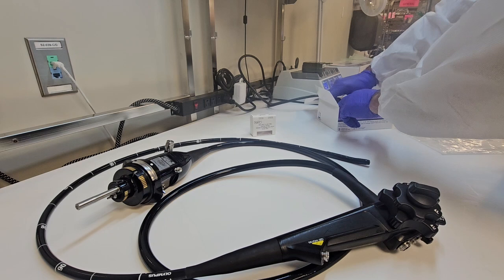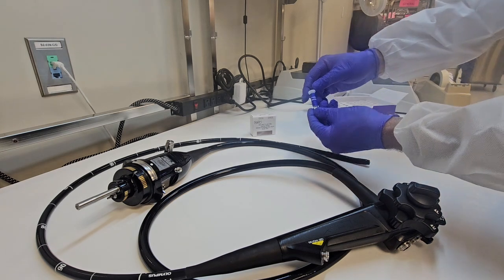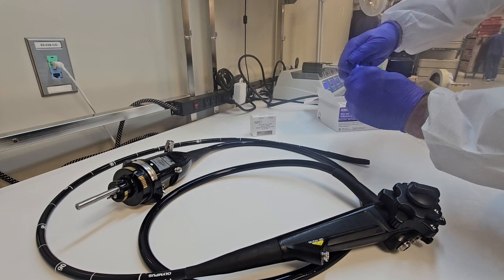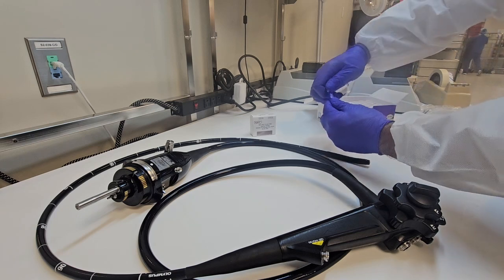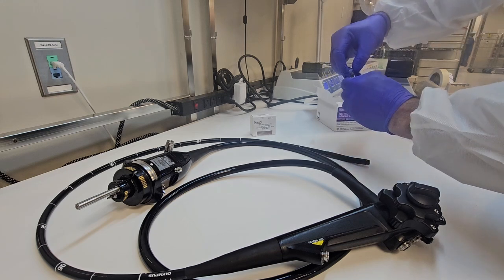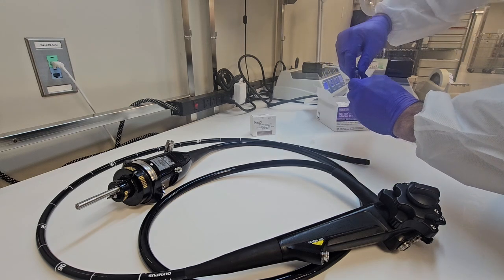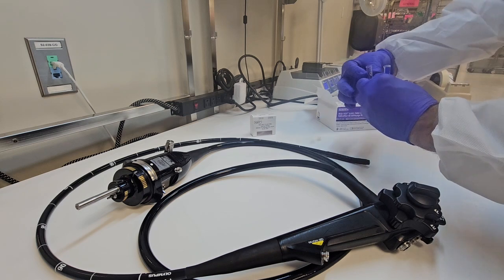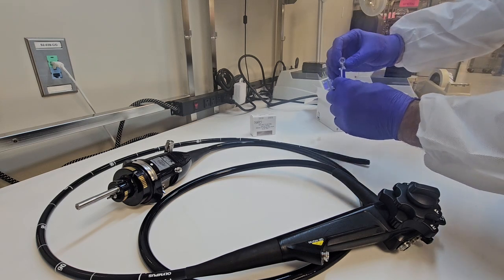This specific cleaning test is a protein residual soil cleaning test. So I'm going to utilize this one here. There are many out on the market. Your facility will choose the test that is best suited for your circumstance and your use.